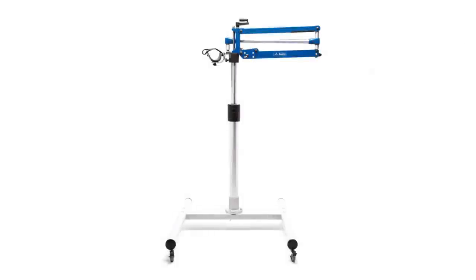Now I will be showing you how to set up the mobile arm support with base frame for patient use. Base frame allows more versatility for this device.